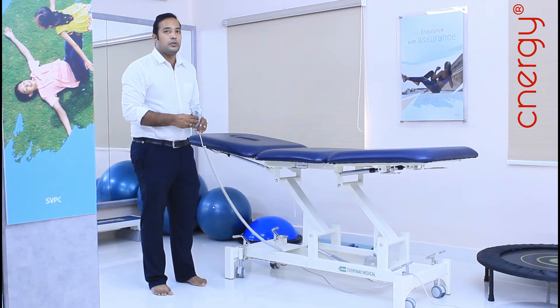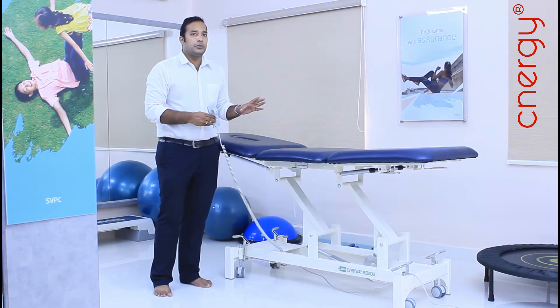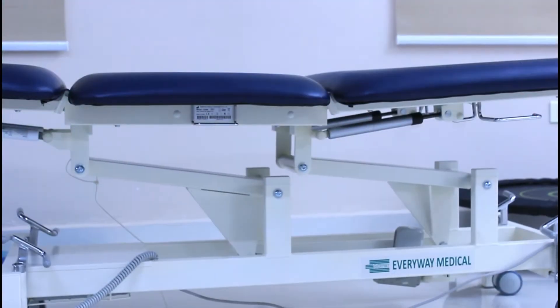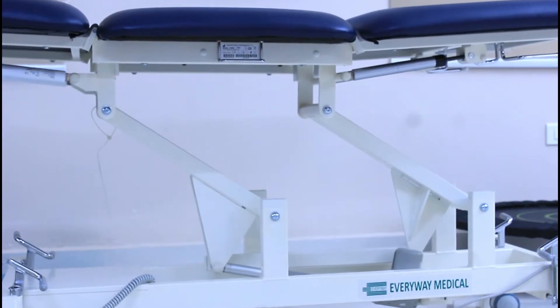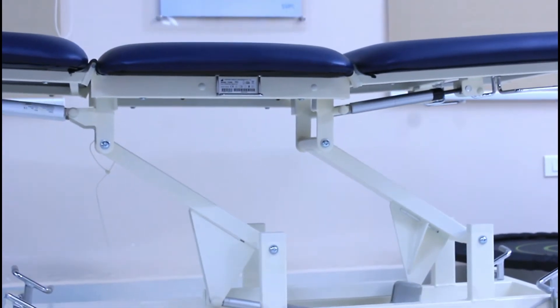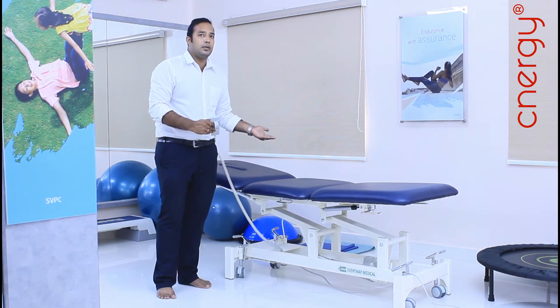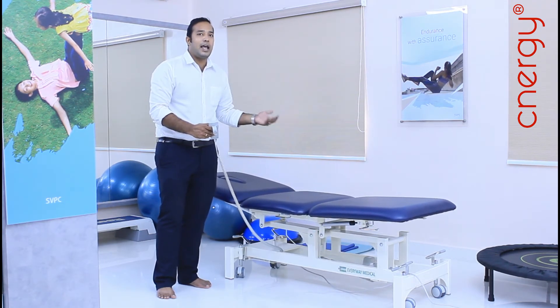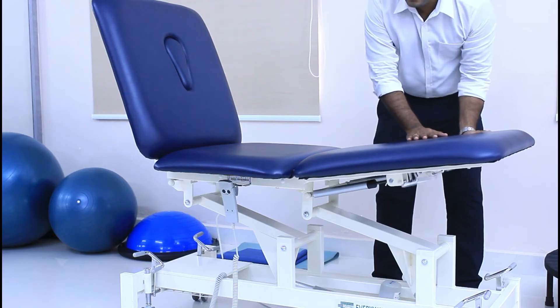It comes with one actuator motor to help with transportation. This device is specifically designed for easy patient transport from one room to another, and you can perform examination activities with the patient. Because of the height adjustment, it will be very easy for the patient to get on, even for patients with obesity or chronic osteoarthritis who find it difficult to get onto a treatment table. So we have options of height adjustment to provide easy access for the patient, and we can also perform thrust activities and mobility activities.